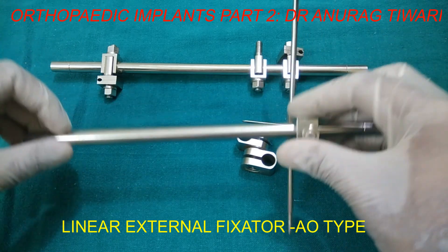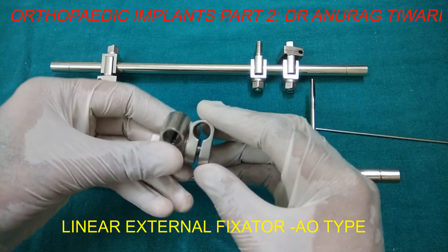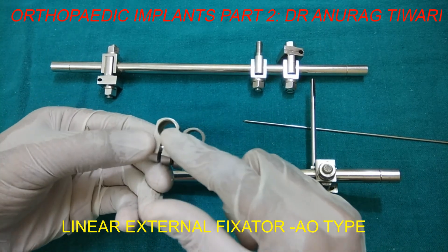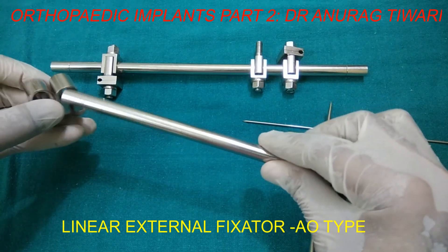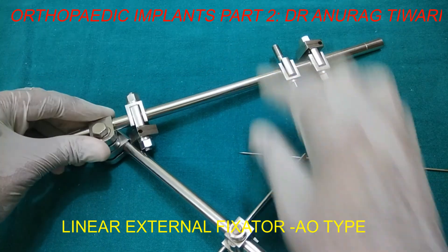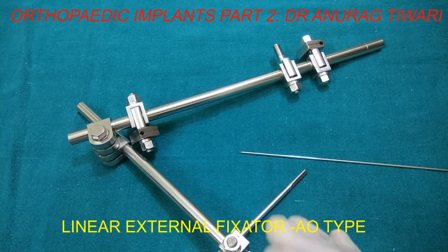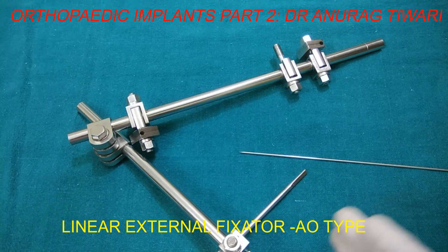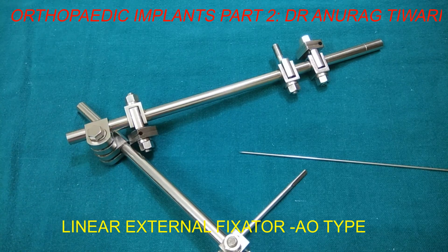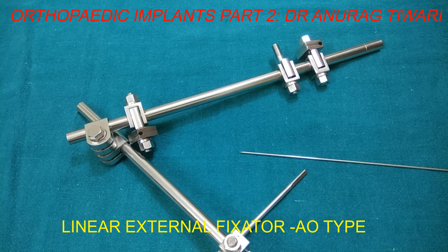Usually we need two or three pins in the proximal fragment and two or three pins in the distal fragment. When we need a certain modularity between the fragments, we need the tube-to-tube clamp, because two connecting rods can be connected here. This gives you modularity where you need a spanning external fixator at the knee or the ankle.